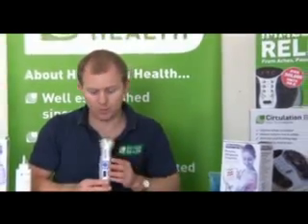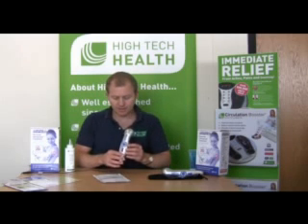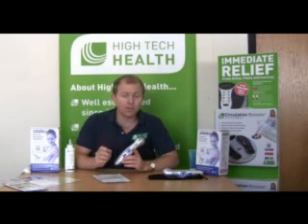This is pulsed ultrasound, and tissue really responds differently to certain therapies. What's important to state is that we've worked with leading people here in the UK to put together the user's manual. Professor Tim Watson from the University of Hertfordshire is really a leading expert in electrotherapy and this type of therapeutic ultrasound. So it's fantastic for home use.